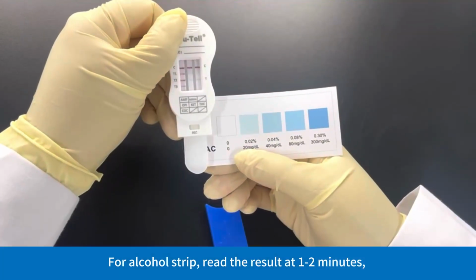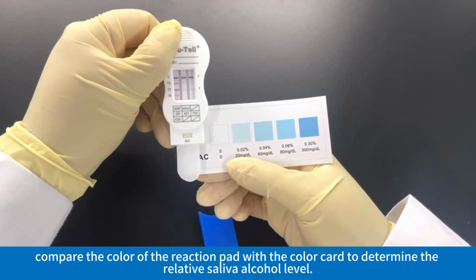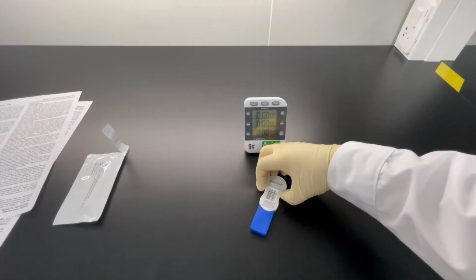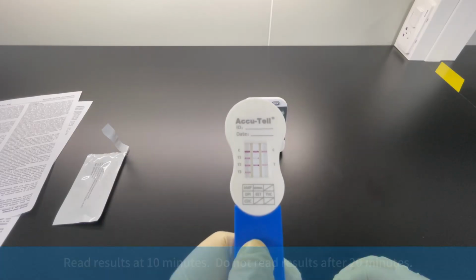For alcohol strip, read the result at 1 to 2 minutes. Compare the color of the reaction pad with the color card to determine the relative saliva alcohol level. Read results at 10 minutes. Do not read results after 20 minutes.